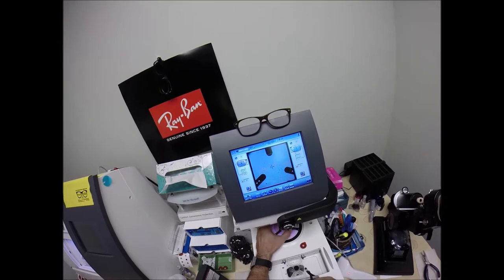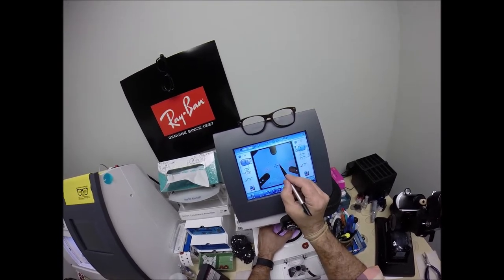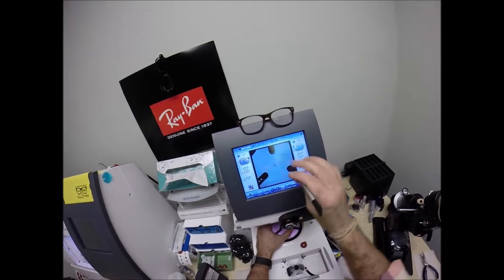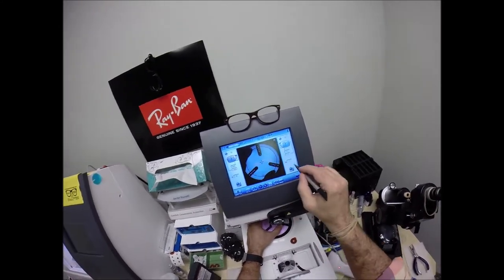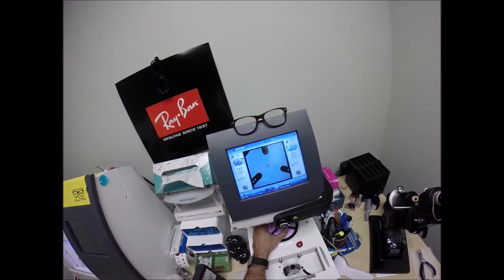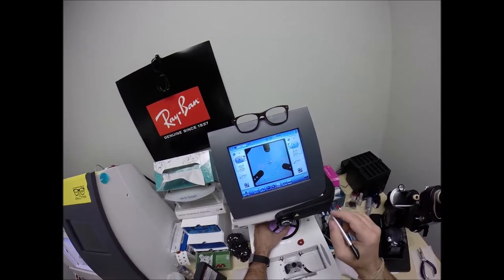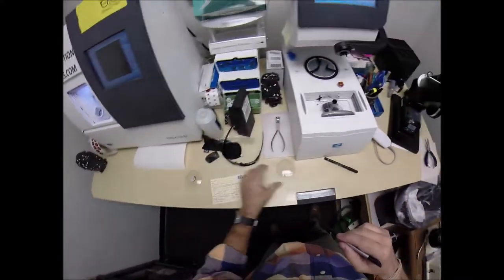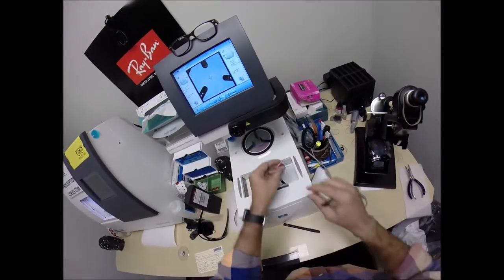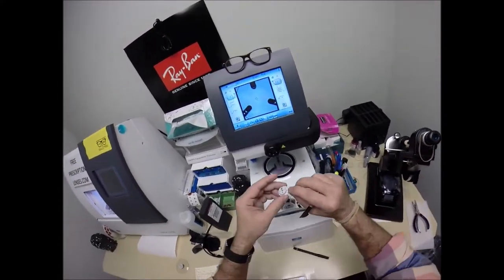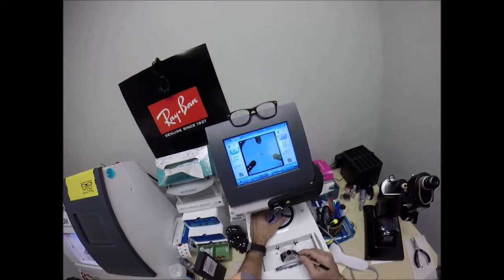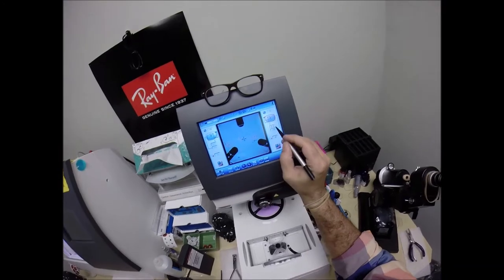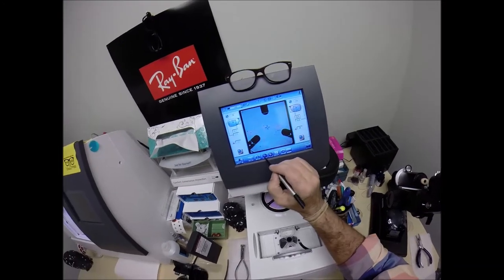Change it to a progressive layout. That is your pupillary distance, the optical center that's going to sit directly in front of your pupil. The arm is going to come down and place the block onto the right lens. We're going to do the same thing now for the left lens. Your pupillary distance for your left eye is 31.5.